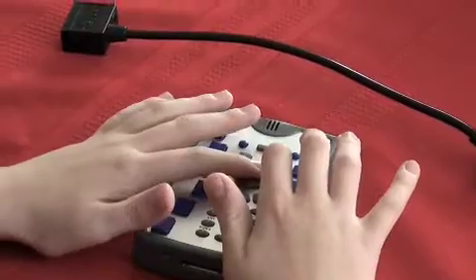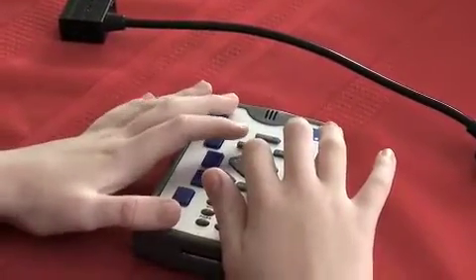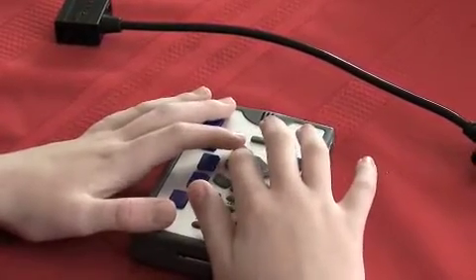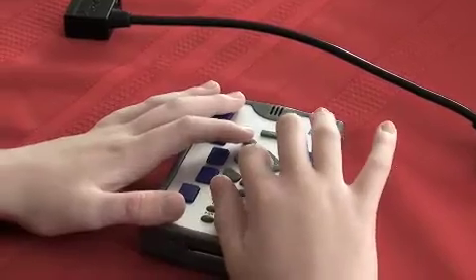The key below that is Select. If you push Select, depending on what you're doing, if you're in a document, it'll read. If you're in a menu, it'll open that program or it can change different options if you're in a dialog box.